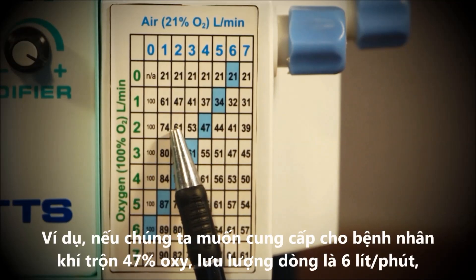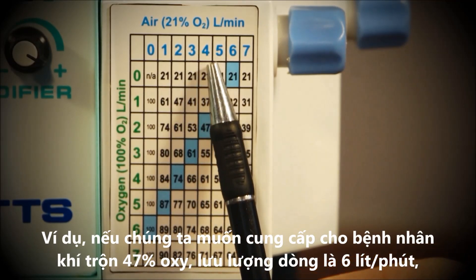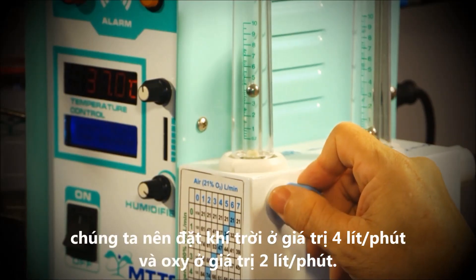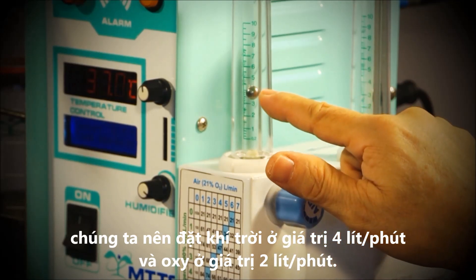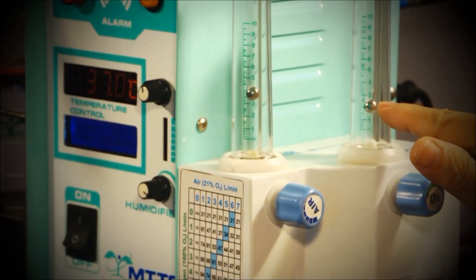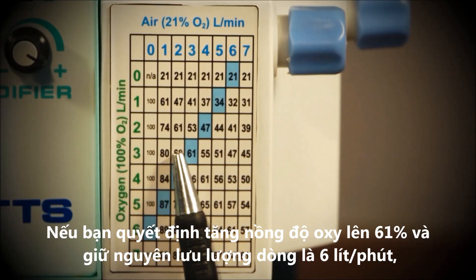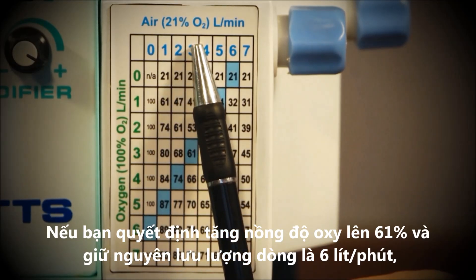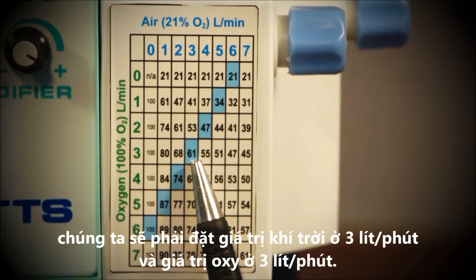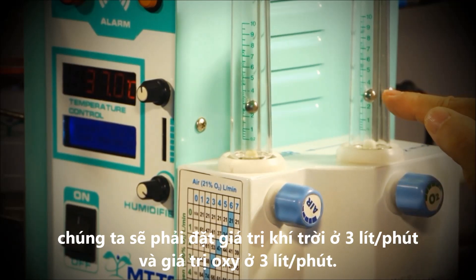For example, if we want to provide 47% oxygen at 6 liters per minute flow, we should set the air valve at 4 liters per minute and the oxygen valve at 2 liters per minute. If you decide to increase the dose of oxygen to 61% and maintain the same flow of 6 liters per minute, you should set the air to 3 liters per minute and the oxygen to 3 liters per minute.